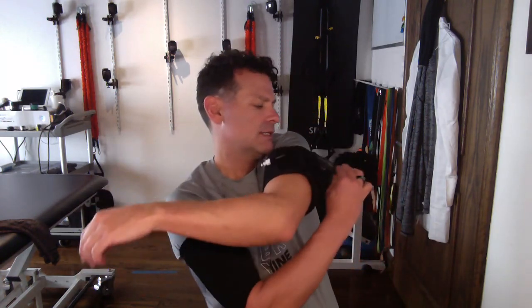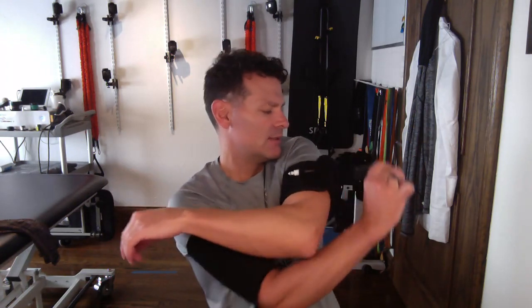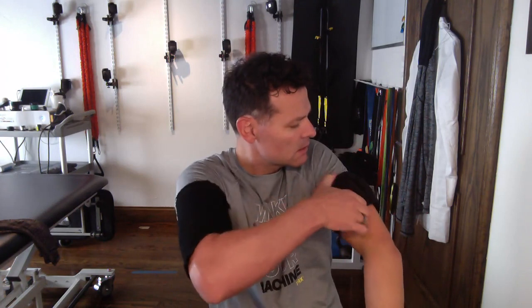Now I'm going to go do this on my left. Up as high as I can — take it as tight as you can get it. This is facing forward, so it's really easy for me: I depress, I clip in. Now I'm going to find my pulse. Relax the arm. And I lost the pulse there, and that's at 118. So they're both the same.